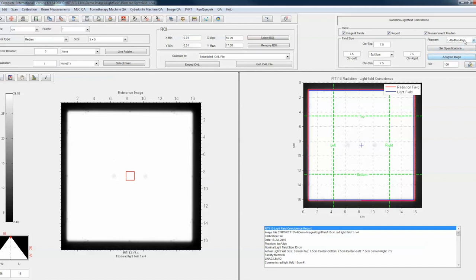Since we've picked LRAD/iso-align, it's taking profiles — top and bottom, left and right — as described in the report. I believe it was TG-49 that describes how you're supposed to take a radiation light field measurement; we followed that fairly exactly and made some minor modifications for what's wanted in the TG-142 report. Basically it's taking lines here to avoid some of the other marks on the iso-align.